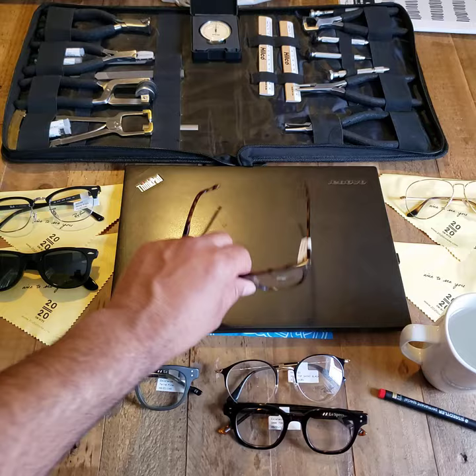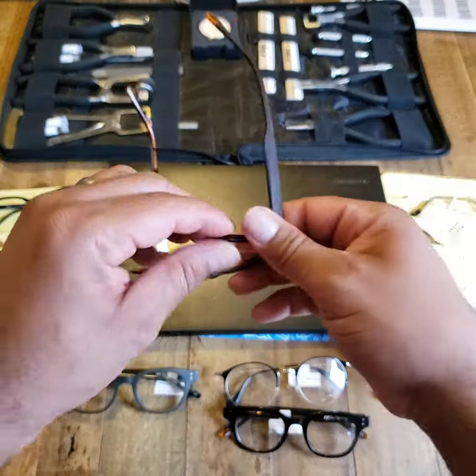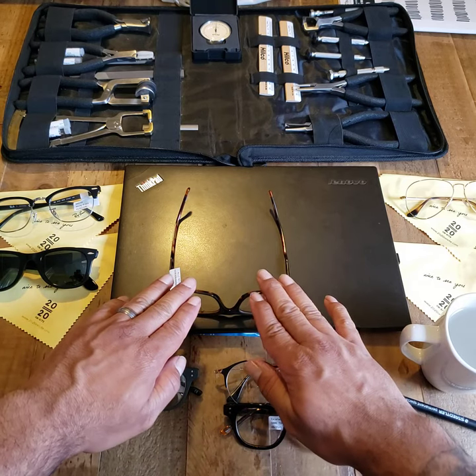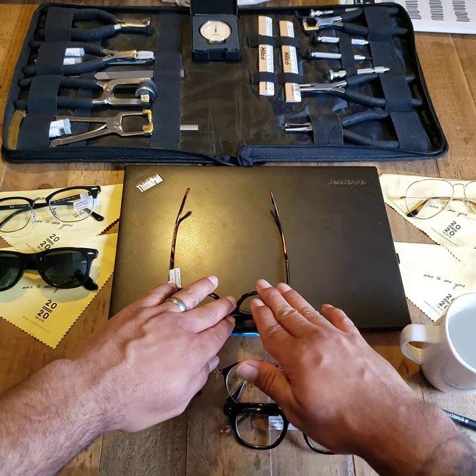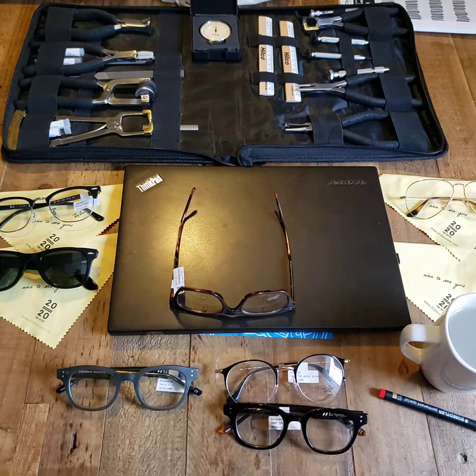This could actually equal an even frame on your face. The way we would check it is by flipping the frame upside down. So let's say you found an area that seems really crooked — flip your frame upside down and see where the frame front is touching. Is there a side that's not touching? You can see to determine whether a side should be manipulated up or down.